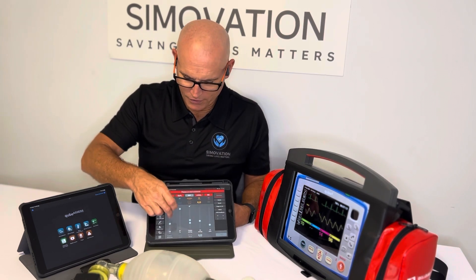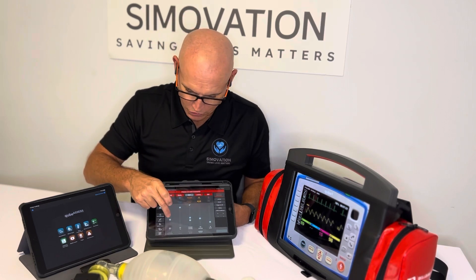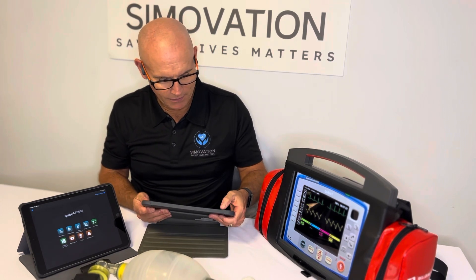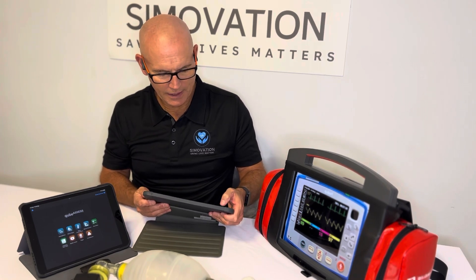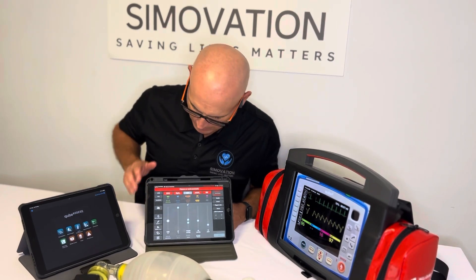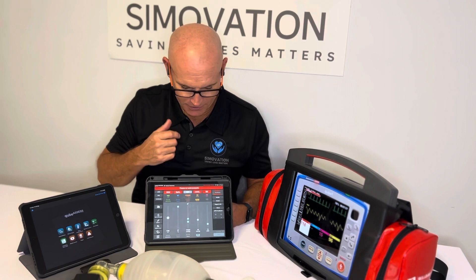In the middle of the screen you'll notice there are these roller balls. You can move those up and down, then press send, and that will actually send the data immediately to the device interface. For example, I've changed it to 136, and I'm now going to make that trend over 20 seconds. I'm tapping the little plus button on the side, moved that to 20 seconds, and pressing send. The heart rate will now go up to about 136 over a 20-second period — a really simple, quick way of interfacing with the device.